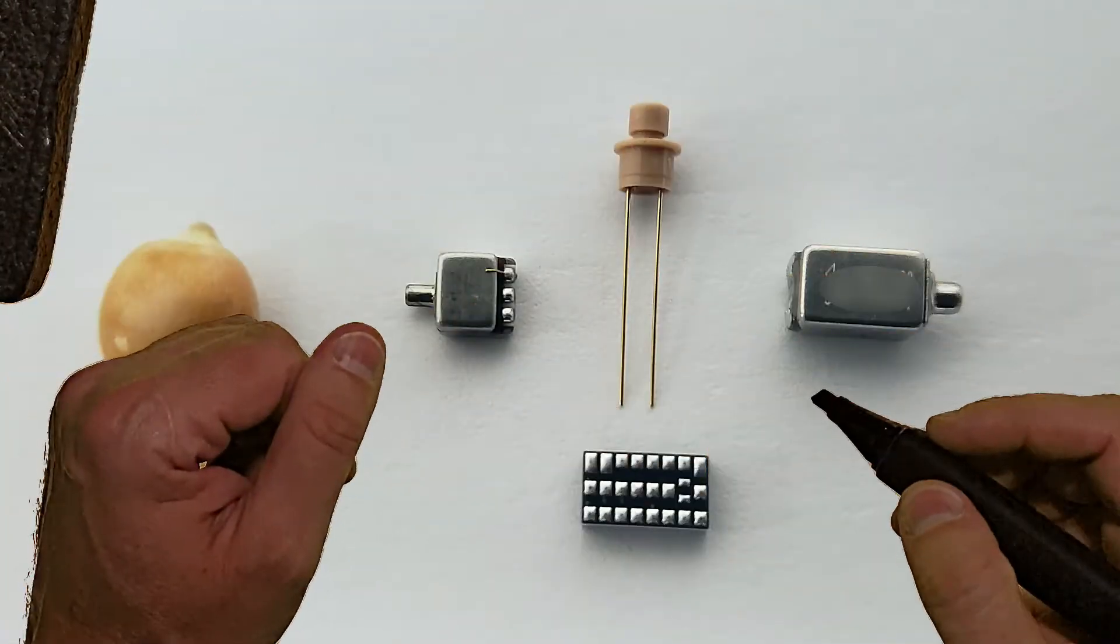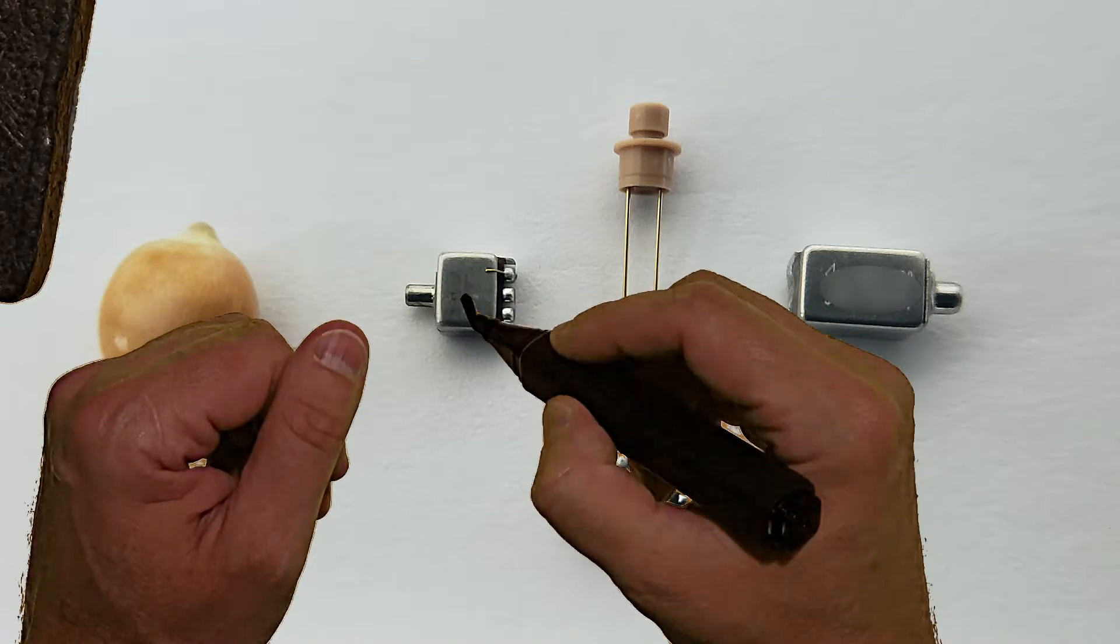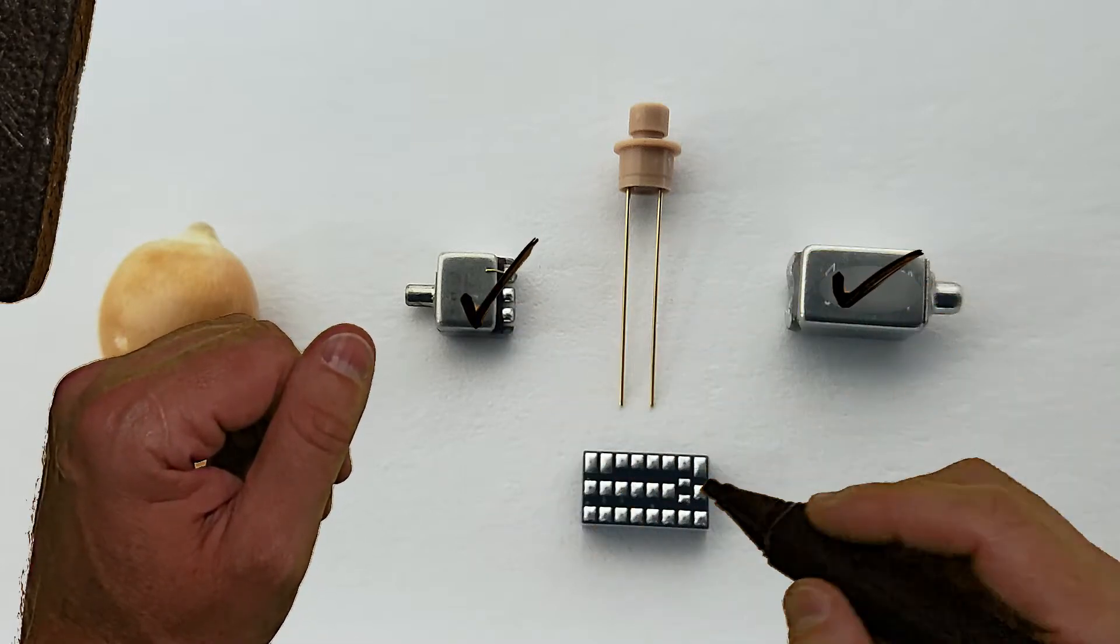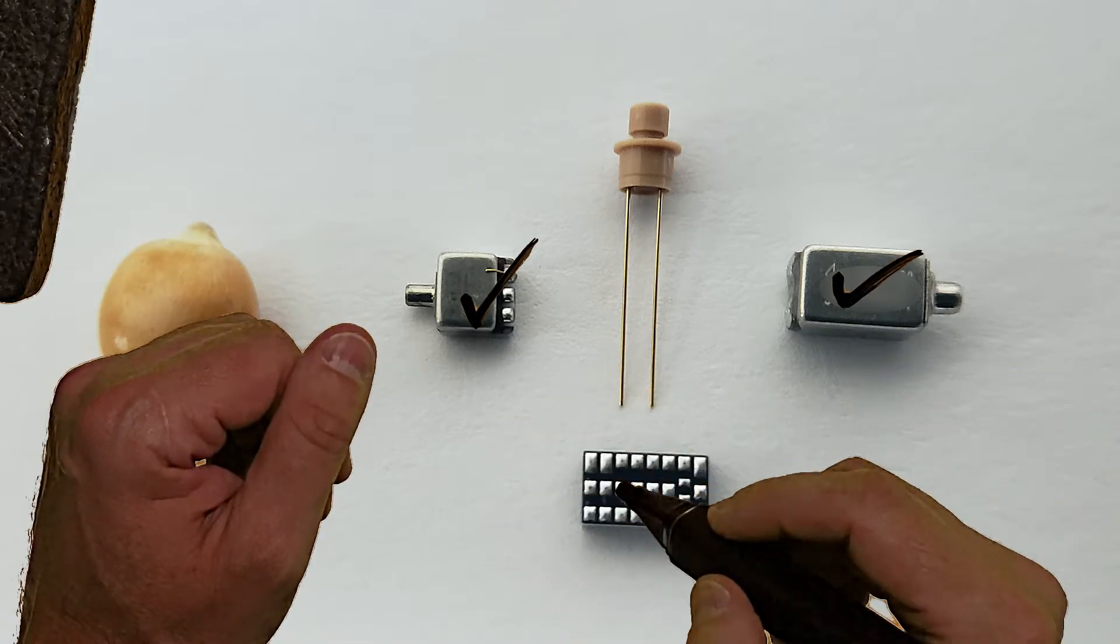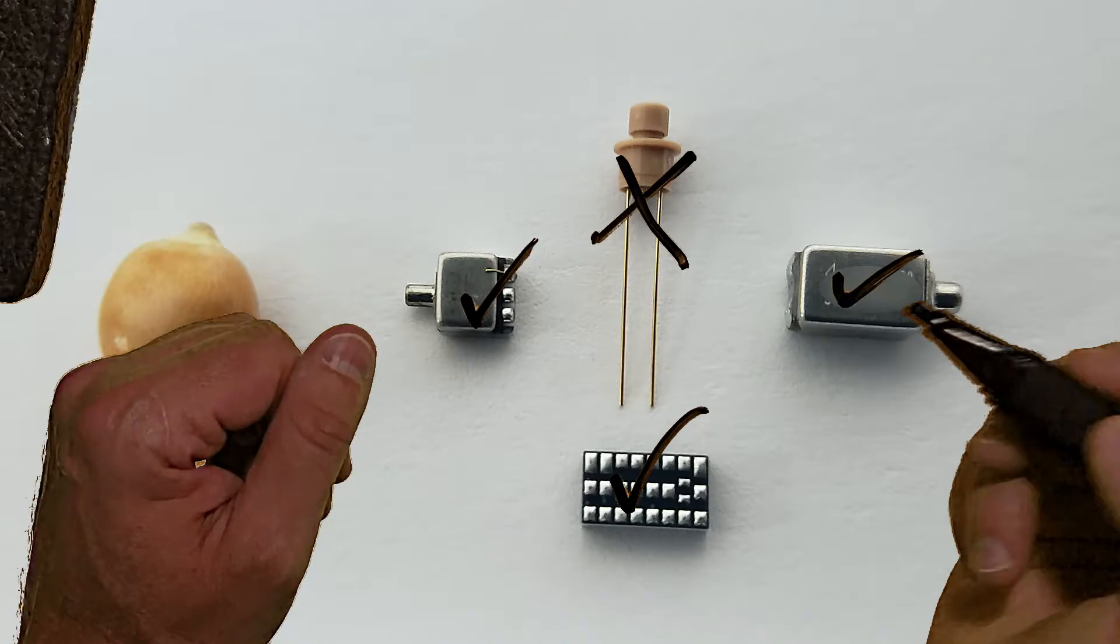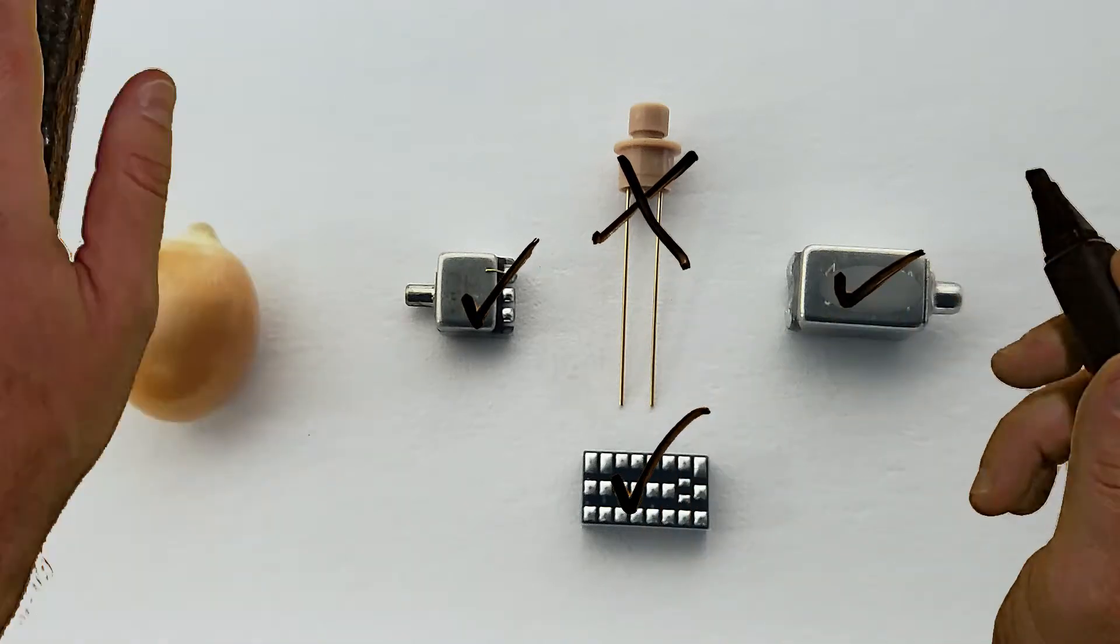Let's say the push button has failed. If we can hear the outside world, that tells me that the microphone, receiver, and microchip work. But if I push down on that button and it doesn't change volume level, then that push button is dead.